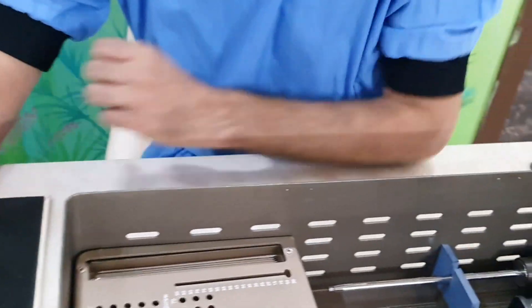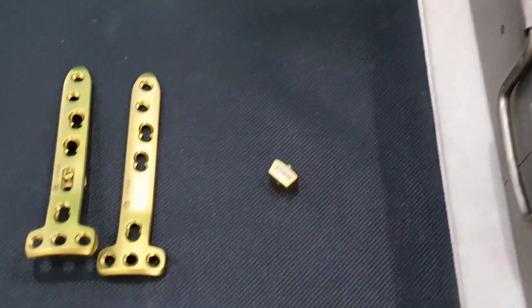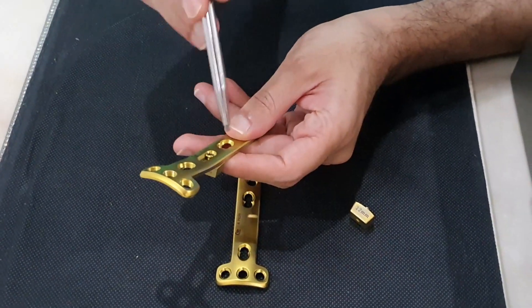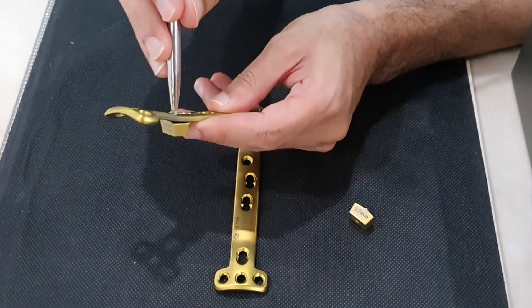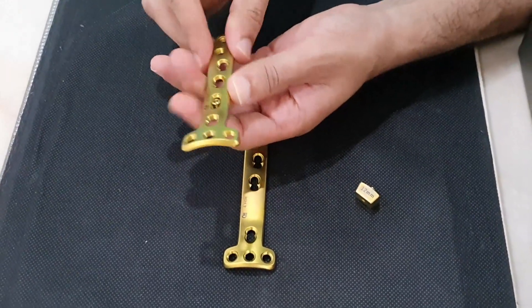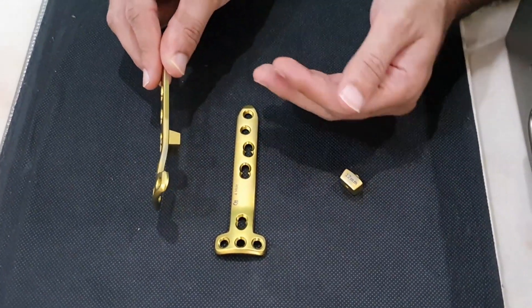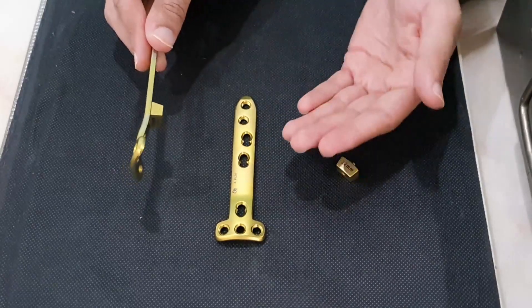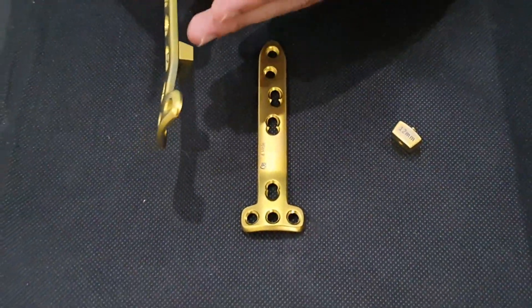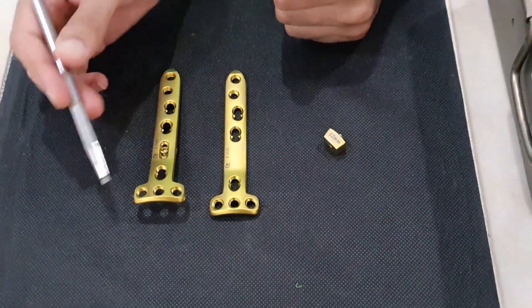A small screwdriver is provided with the set. You can use the plate with a wedge — the wedge can be shifted up and down and tightened. You can use the wedge as needed, or substitute it with a bone graft or a calcium substitute. The wedge is available in two dimensions: 10 millimeters and 12 millimeters. This is a very good T-shaped plate with good fixation options.